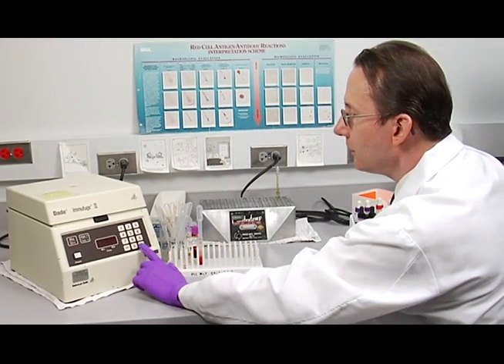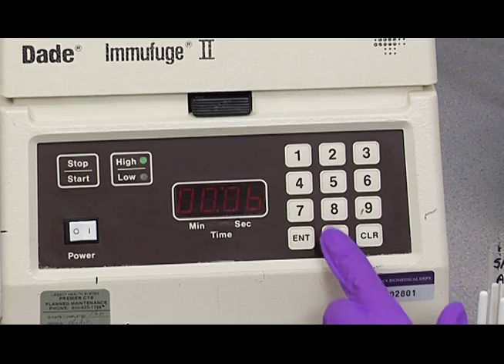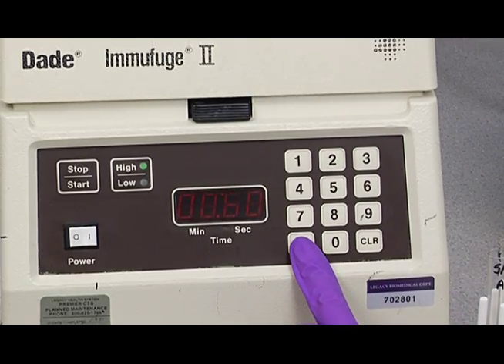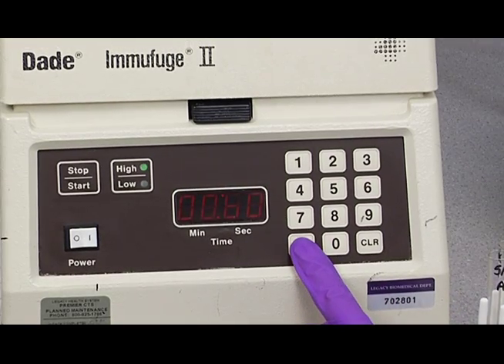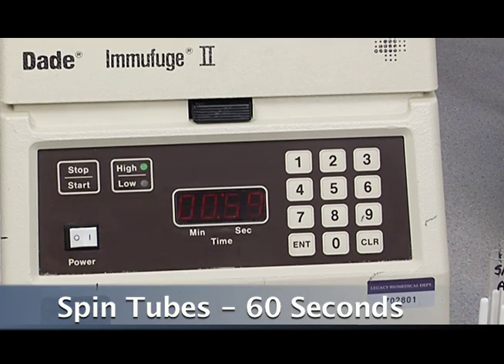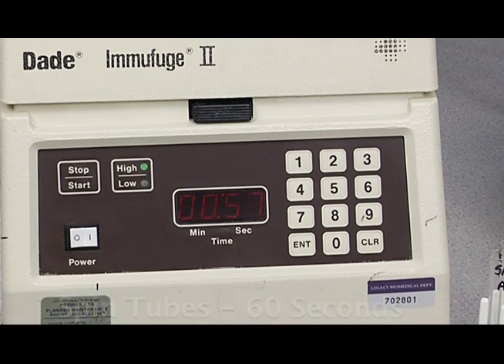Then we're going to spin these down for 60 seconds for a wash. So I'll demonstrate the washing procedure for you now. And they'll spin down for 60 seconds.